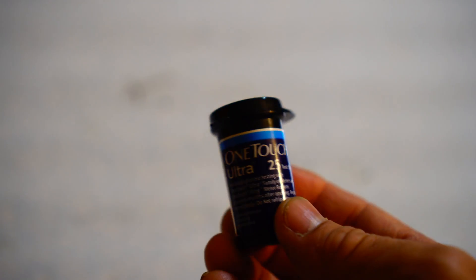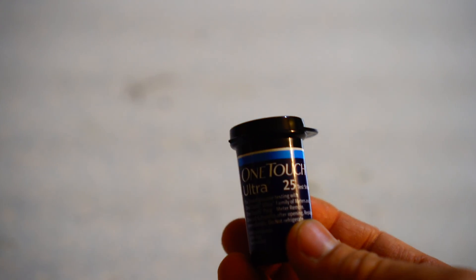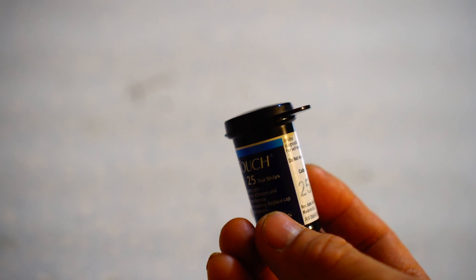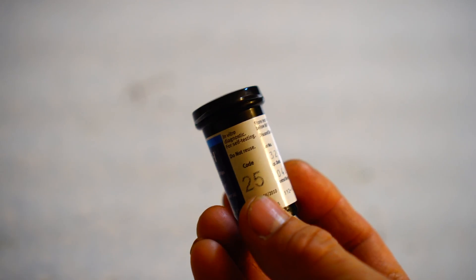I'm not diabetic, but I do use glucose test strips as a way to check my blood sugar and ensure that I'm having sufficient ketone levels. Here I have an old One-Touch strip that I got. I think this one is basically four years old.